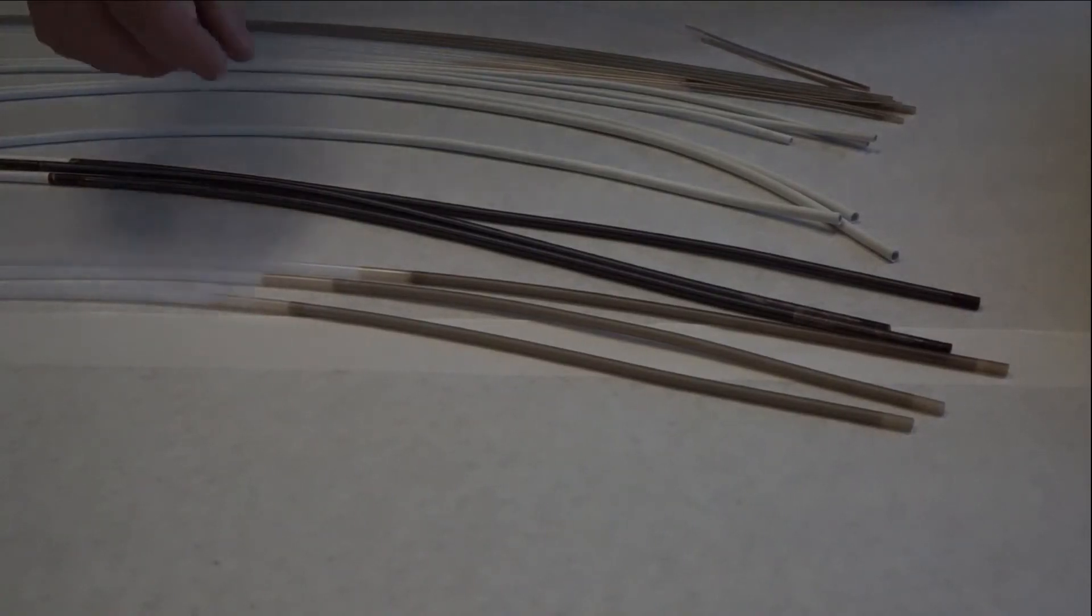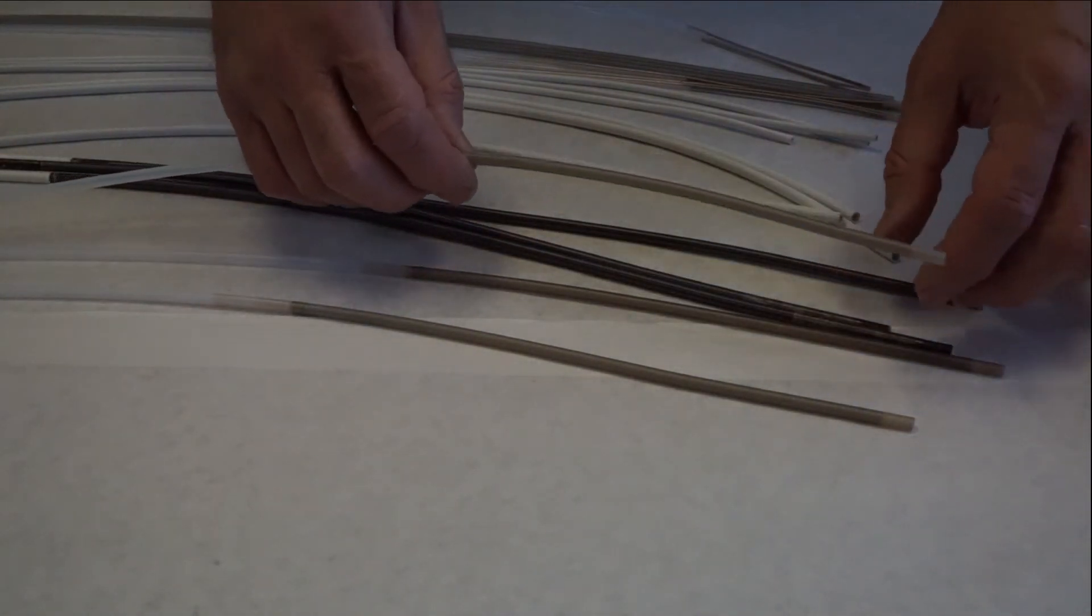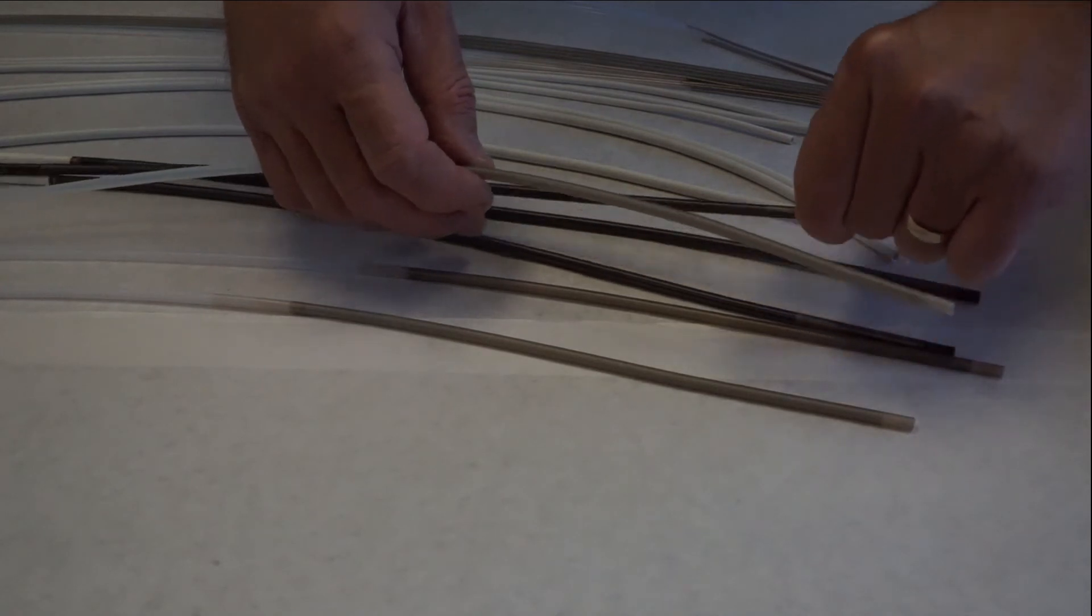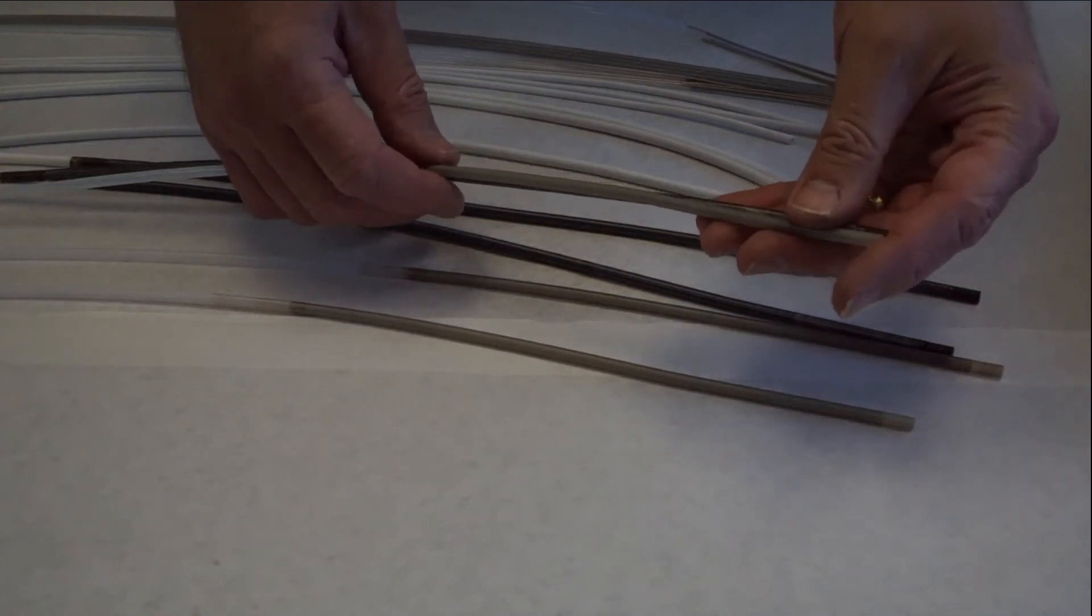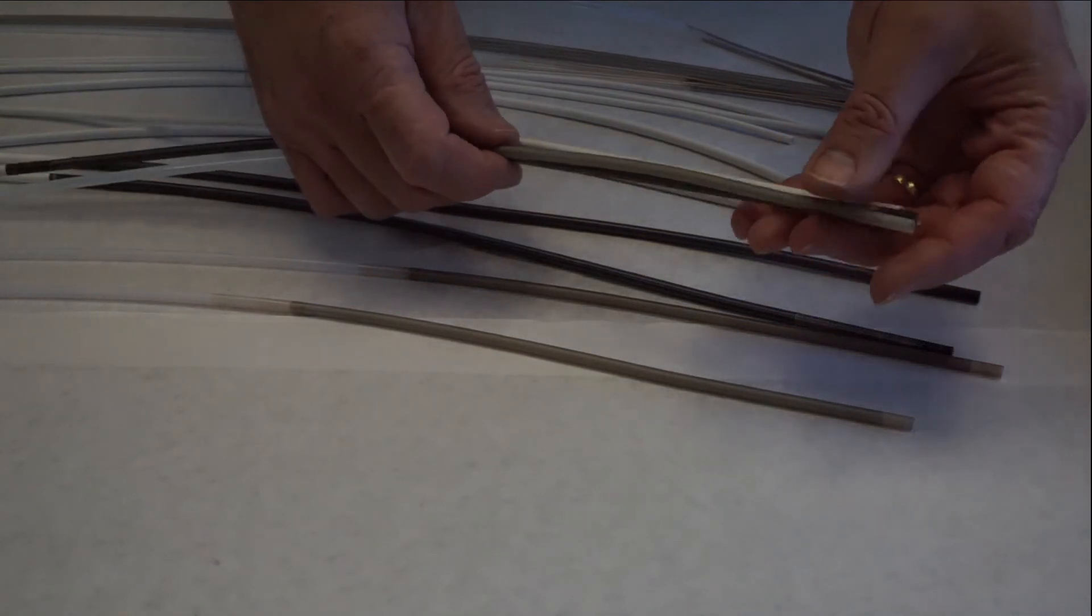Each type of channel has its strengths and weaknesses and not every type of channel is exclusively meant for one maker model scope. In the hands of a trained technician channels can be interchangeable and effective regardless of the make or model of the scope used.